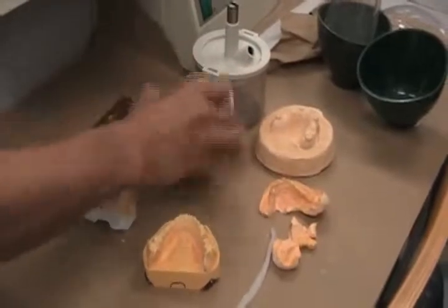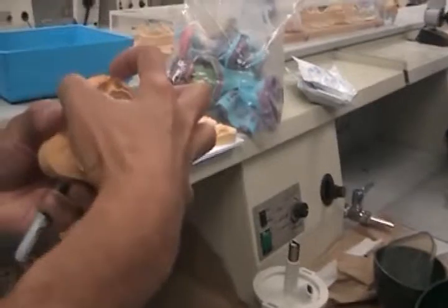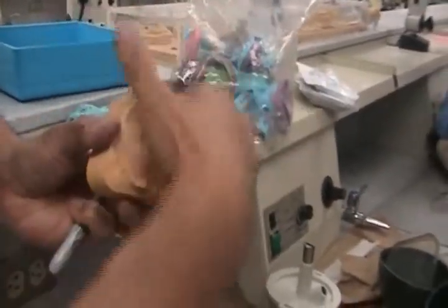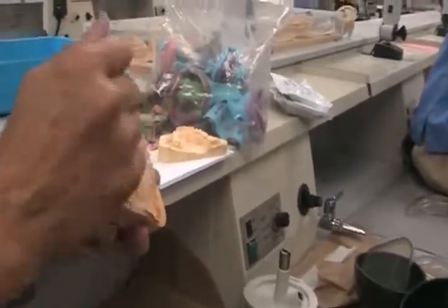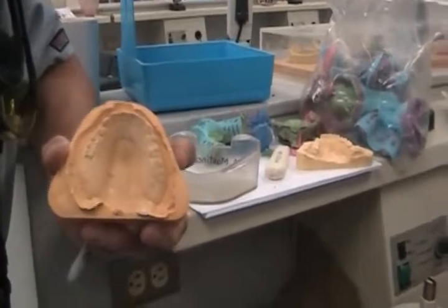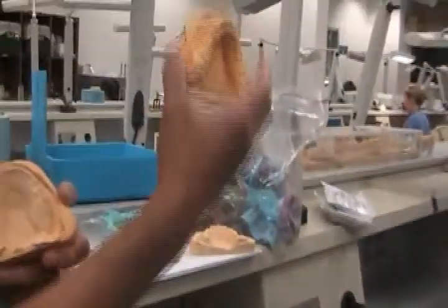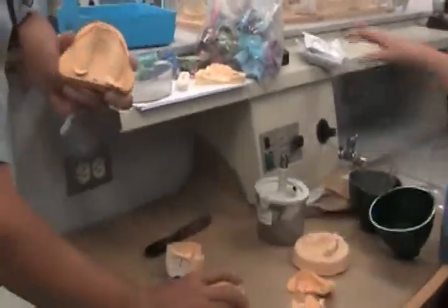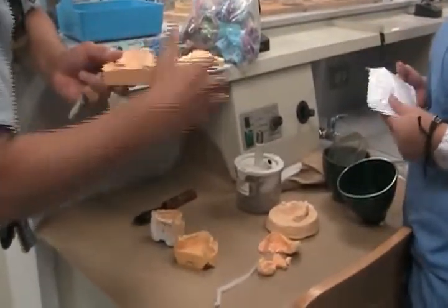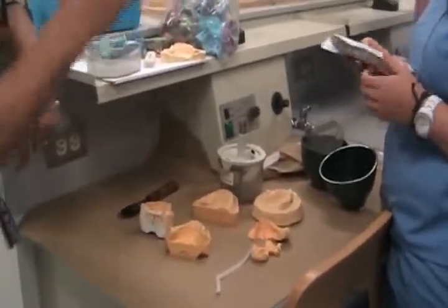When they do full denture cases — and I know this is a full denture impression — when they separate it after processing and clean off the acrylic, the stone is actually broken up. So if you poured your maxillary or mandibular full denture cases using Crown and Bridge stone, that's going to be tougher for the lab. We just learned 'yellow stone,' but we need to know which yellow for what purpose.